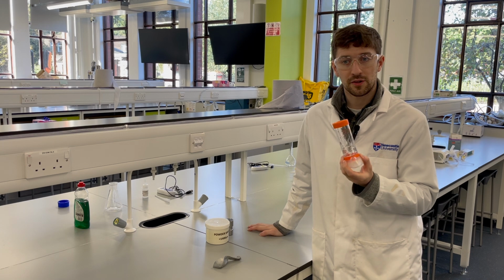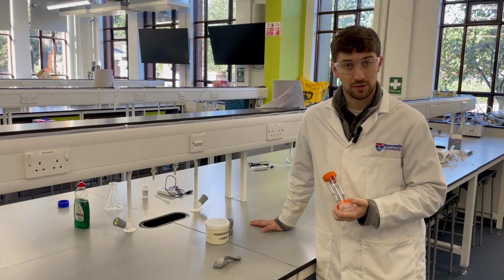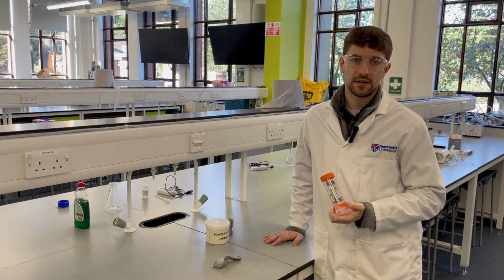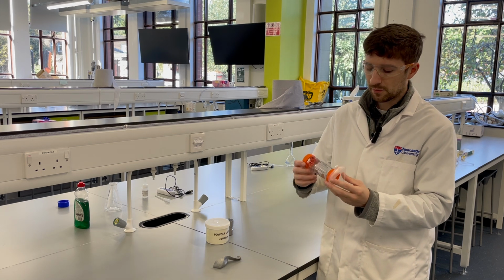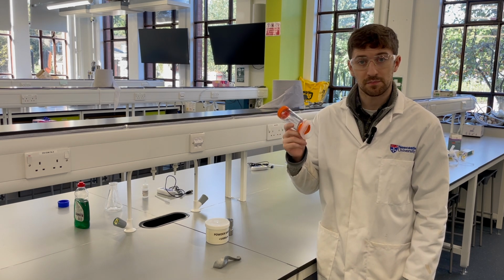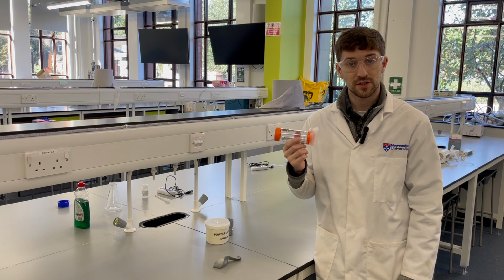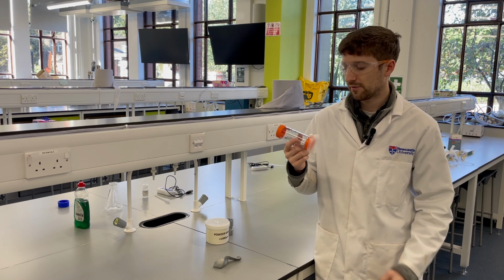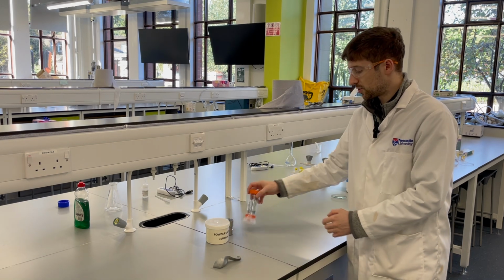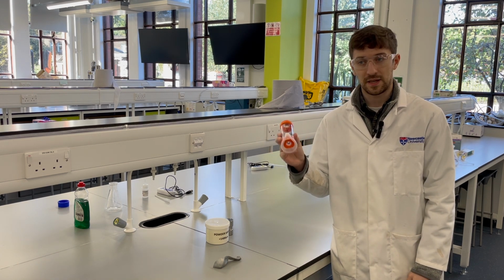And of course, we're going to be thinking about that in the context of the spacer, okay, the spacer device, and I will have an example of the metered dosage inhaler too to help you conceptualize the triboelectrification concept. And we're going to be thinking again about ways in which we can try to reduce that static buildup in spacer devices, which can dramatically reduce the efficacy of the spacer in terms of inhaled drug delivery. And we'll have a small solution of surfactant here, which you're going to use to try to clean one of these spacer devices.